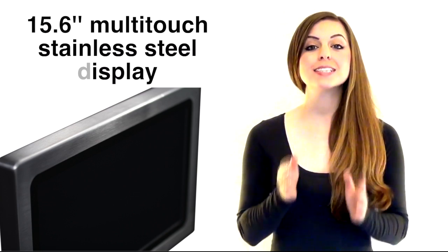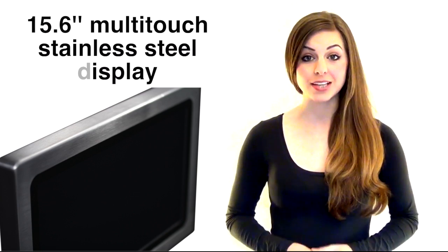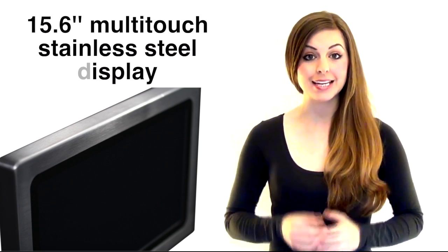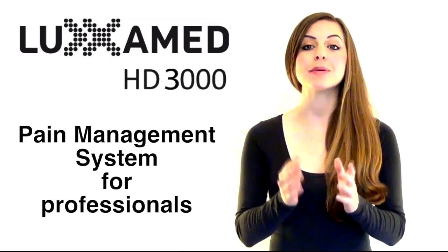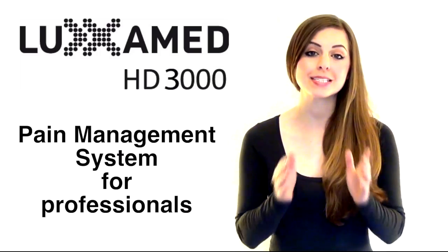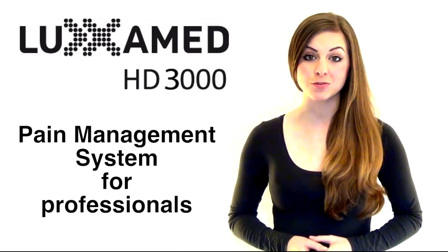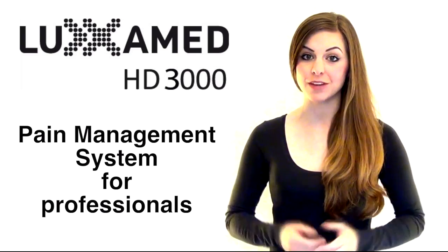The device can be fully integrated into your daily treatment routine, while its outstanding mobility allows it to be deployed in a particularly wide range of usage environments.